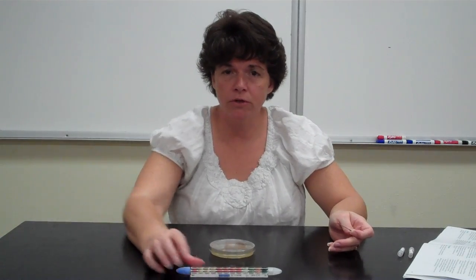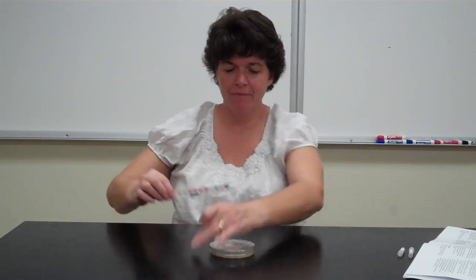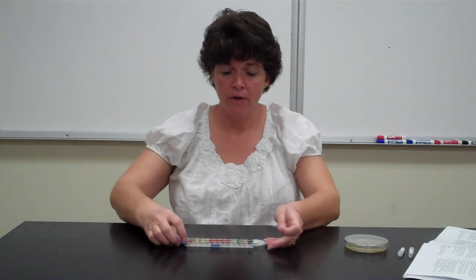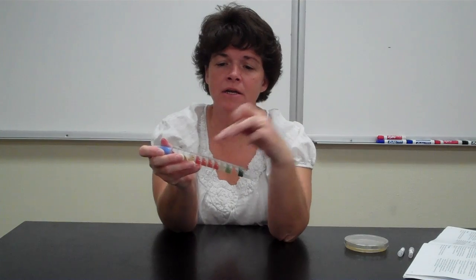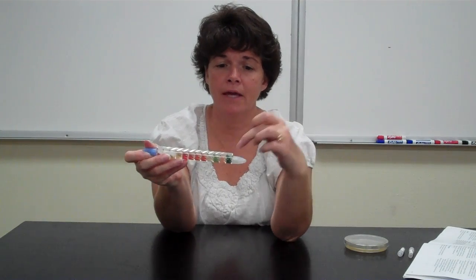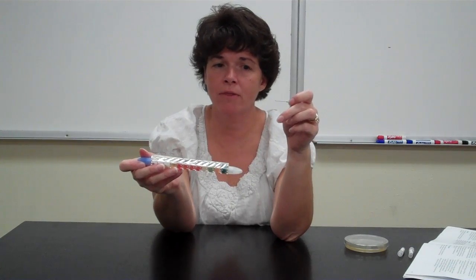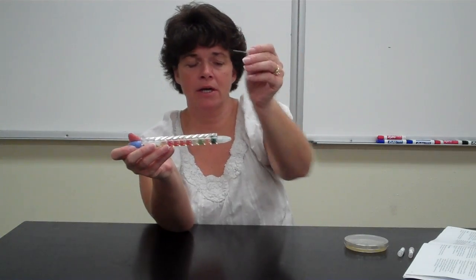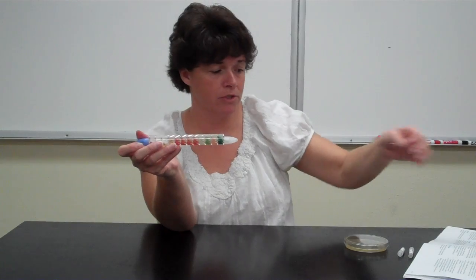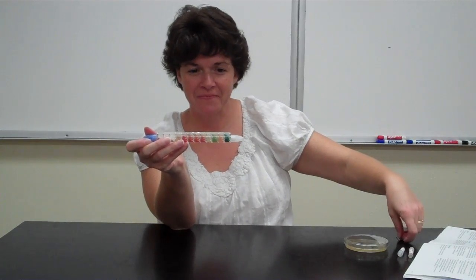Okay? So when you go to put it in the incubator, you're gonna put it down here. The compartments that you're gonna pierce are on the side of it, not on the bottom, okay? You want this to remain the way it is. So you're gonna take this, because it may have bacteria on it, and you're gonna throw this in a waste beaker, which is imaginary right here, okay?